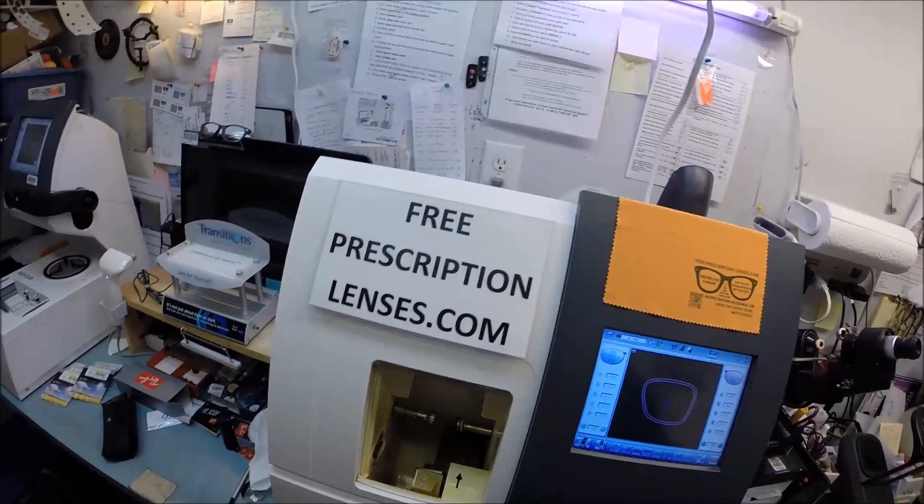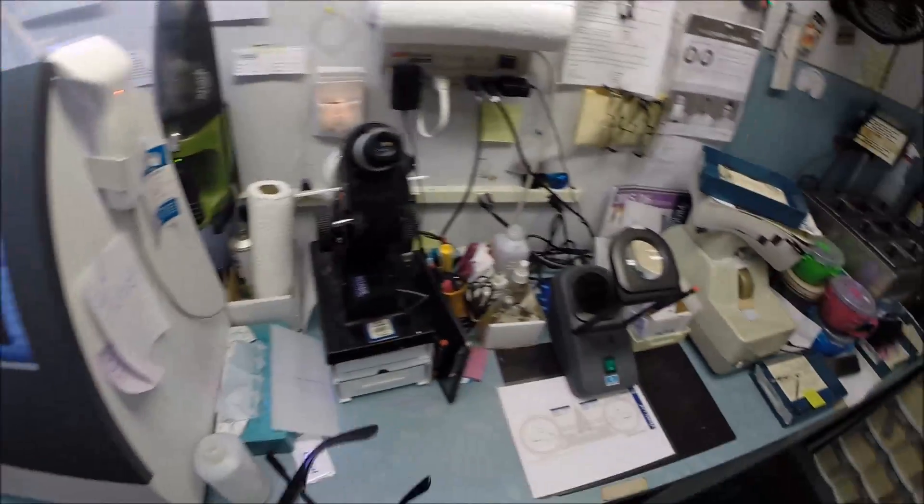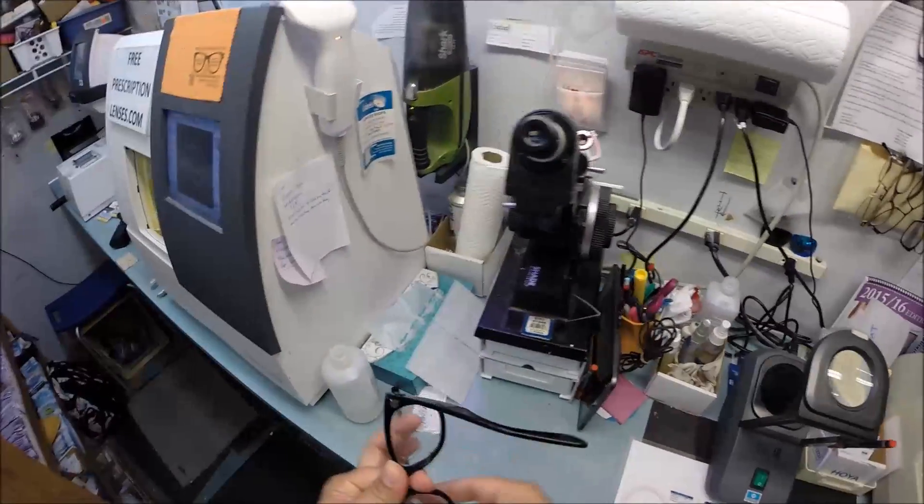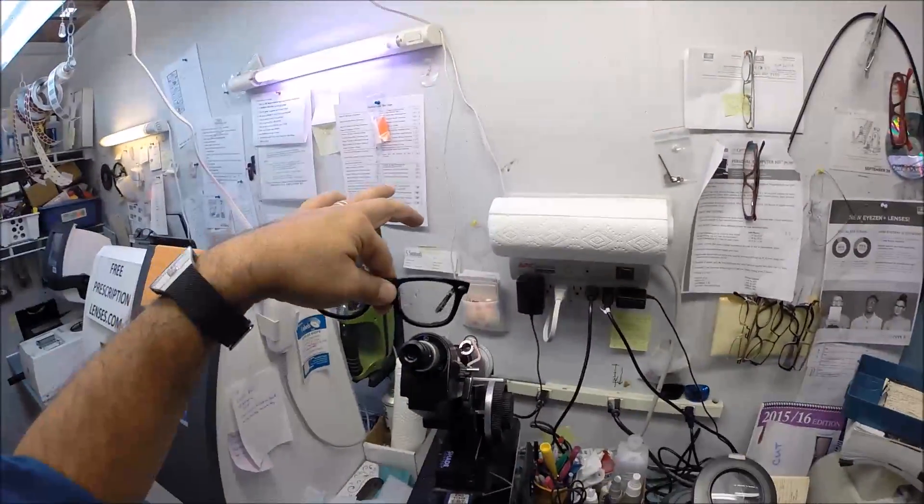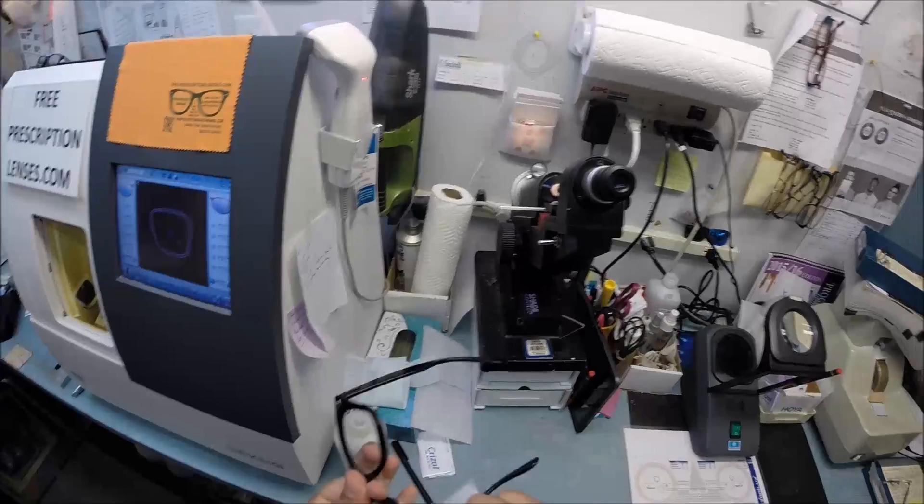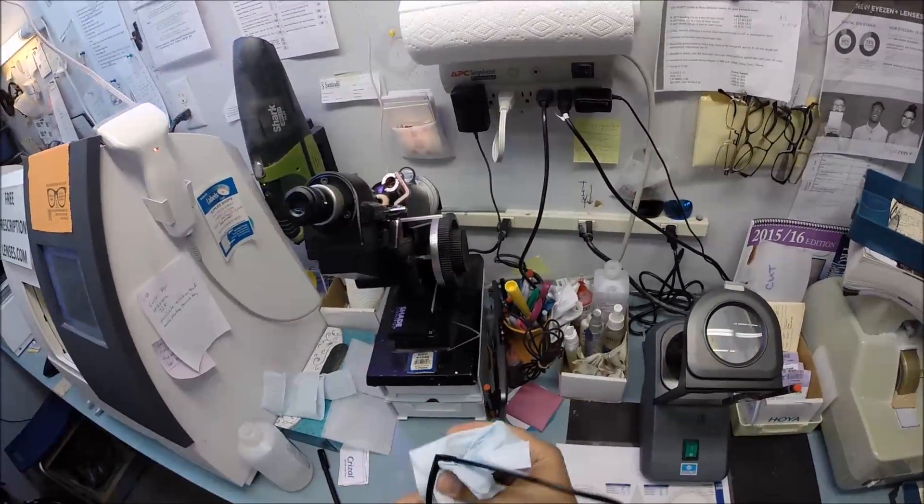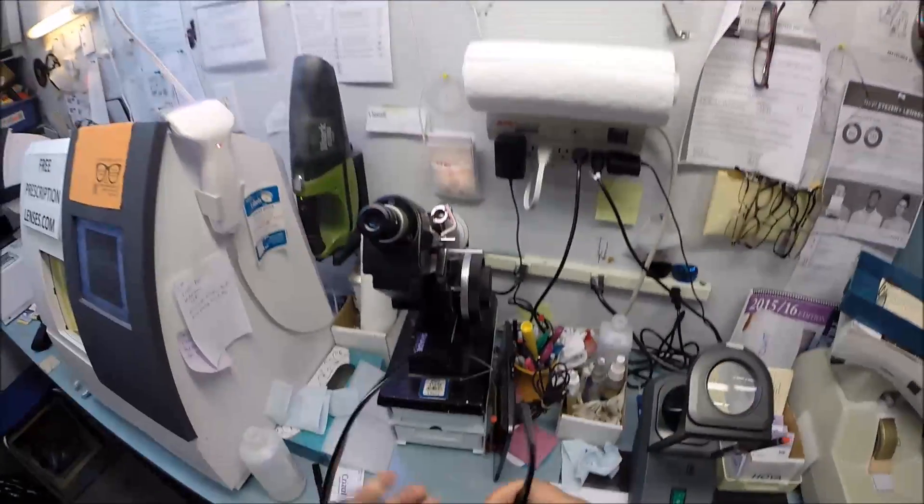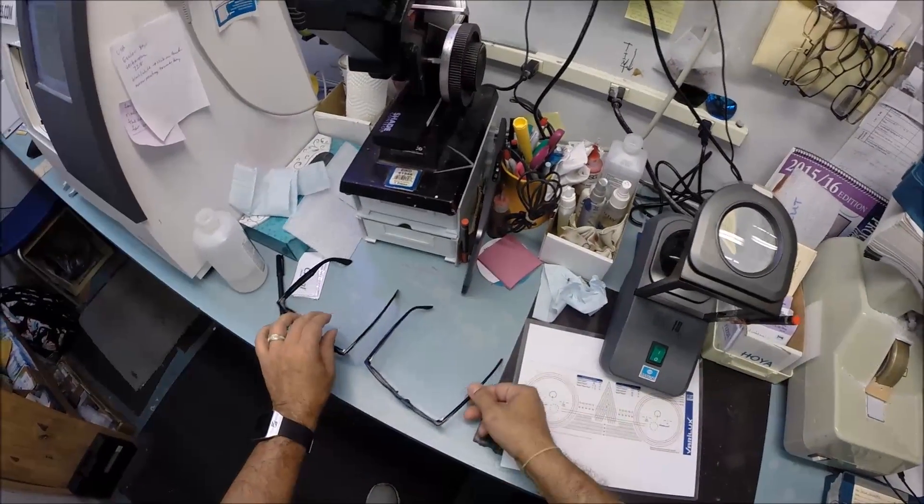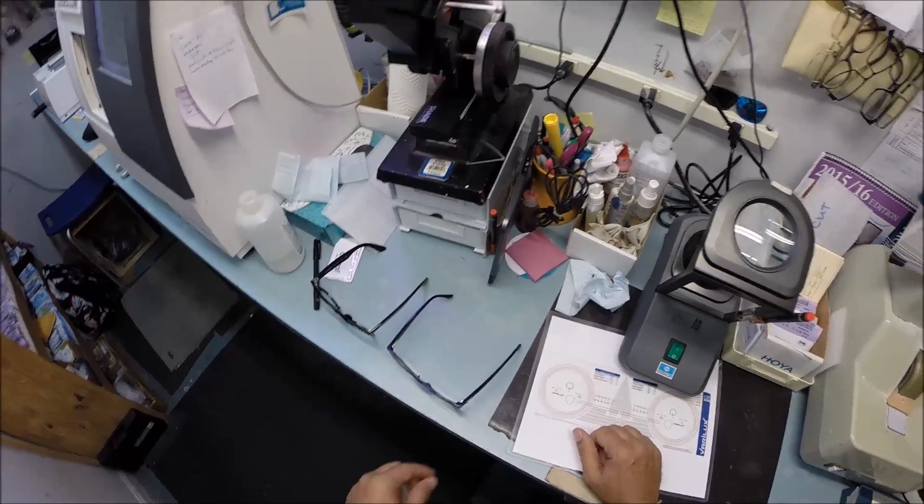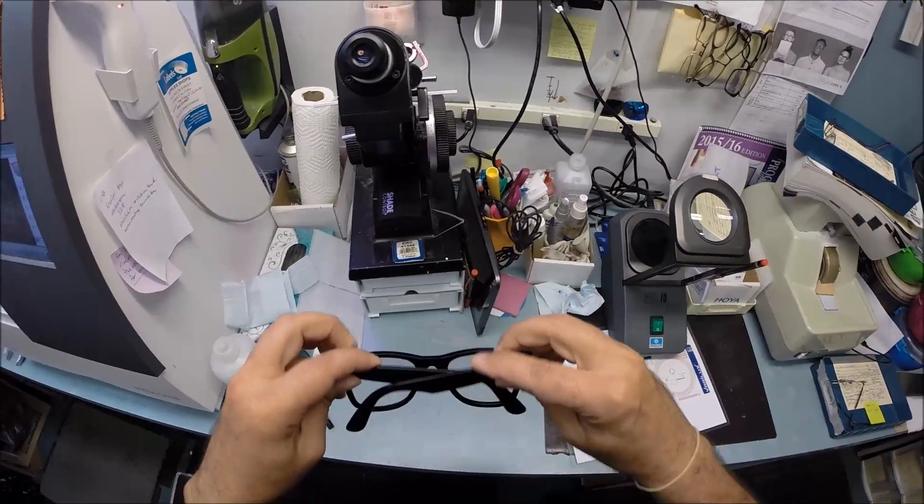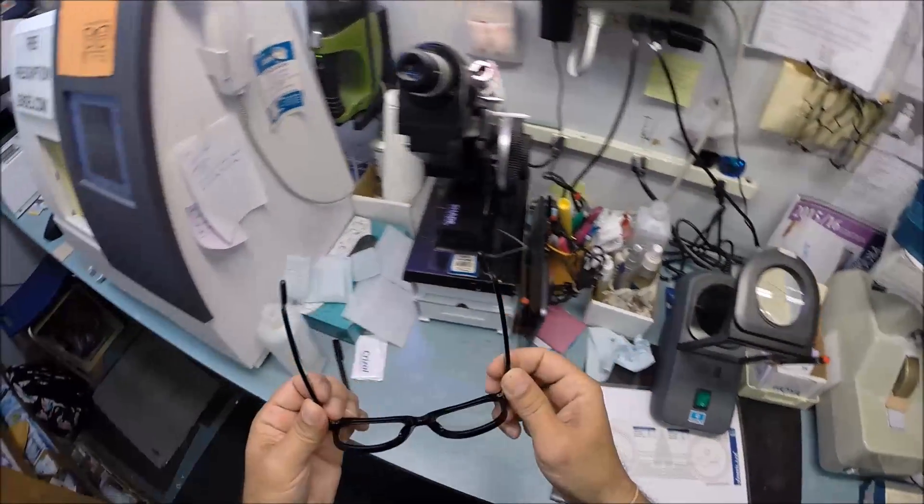When you get these in the mail Cory there's a small chance that these could fit too loose or too tight, however there is an 80% chance that one side is gonna sit higher than the other because 80% of people have one ear that is higher. 99% of all optical shops will do free adjustments if you ask them. I'm gonna get these in standard alignment first, also known as a three point stance. I set them on the counter and press down, there is no wobble. I close each temple to make sure they overlap perfectly and neither are askew. Check the tension on each spring hinge.